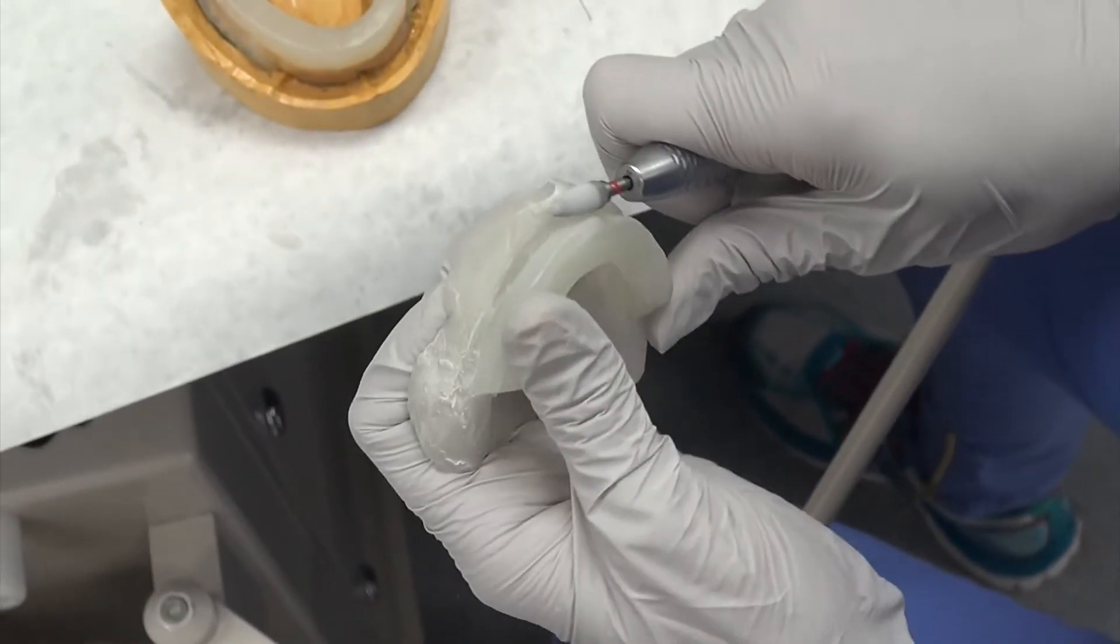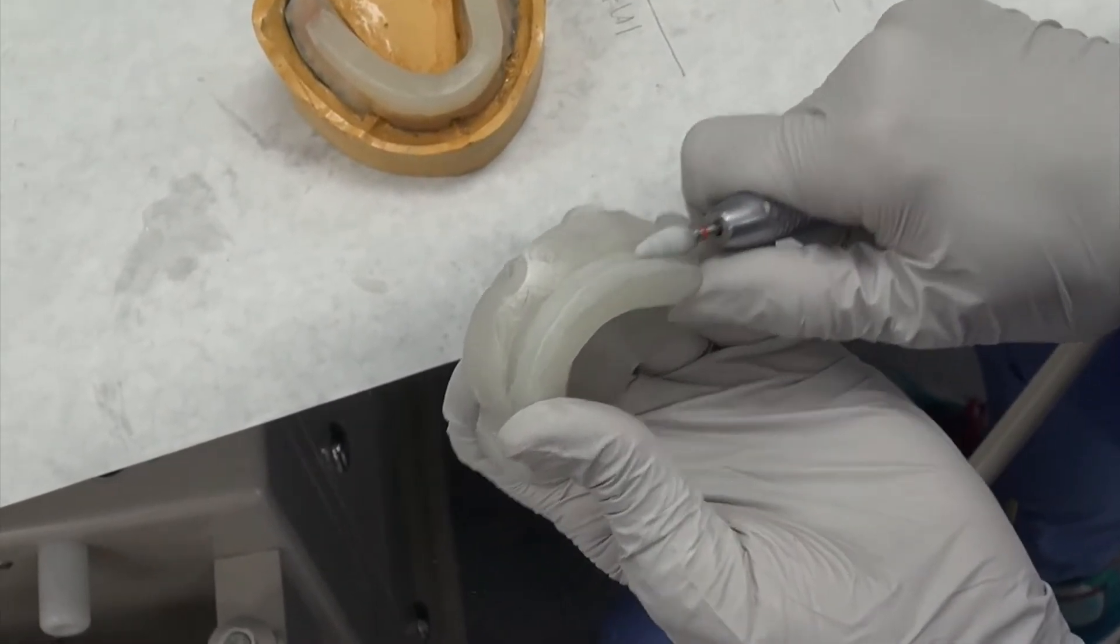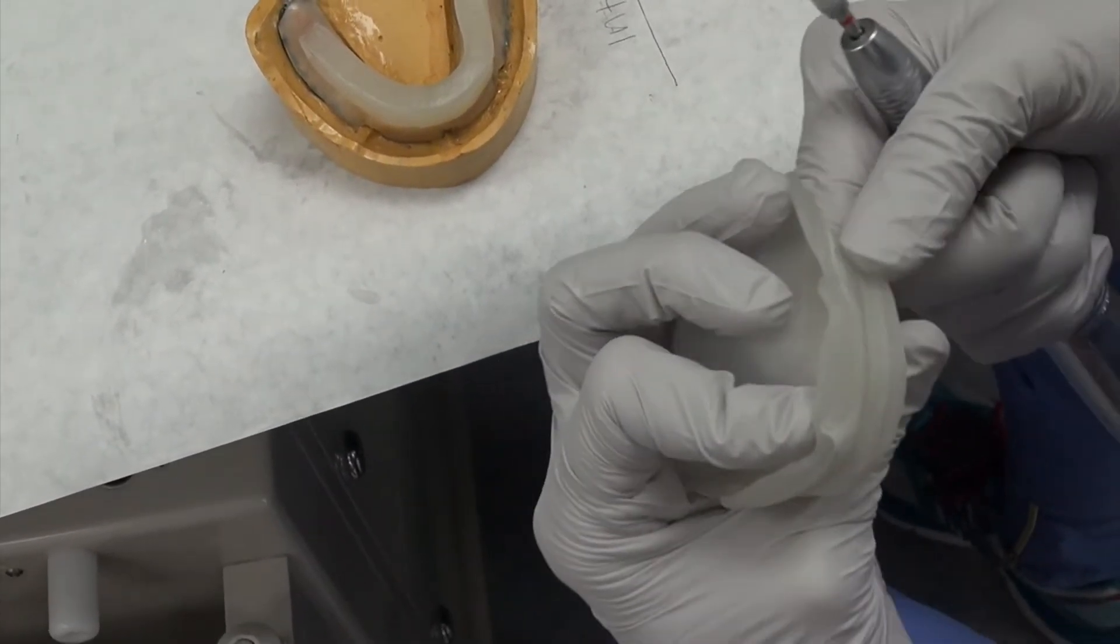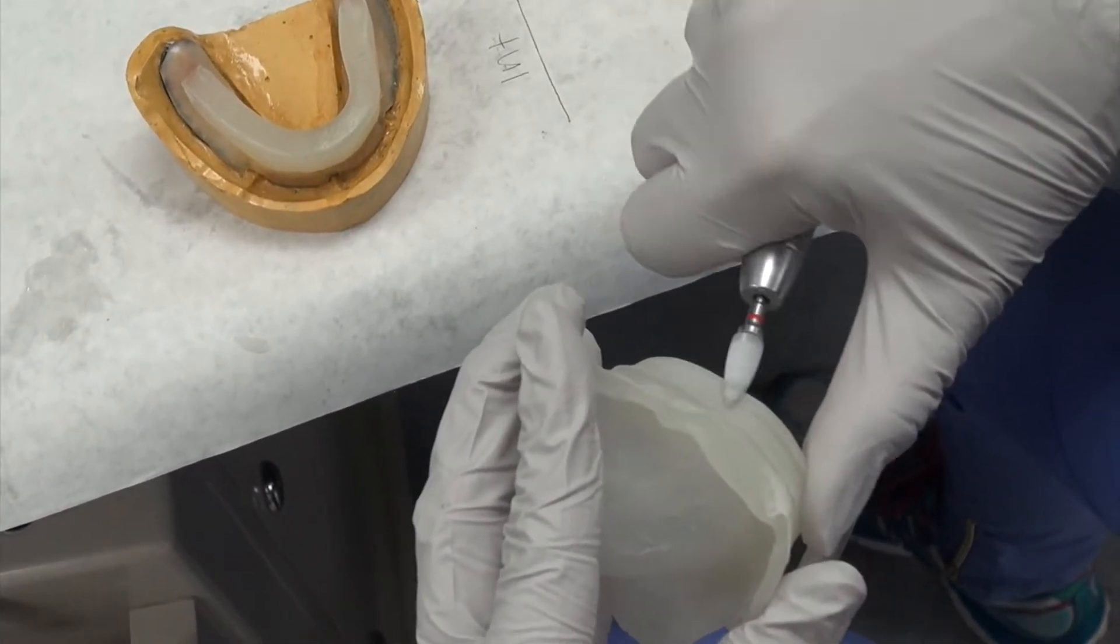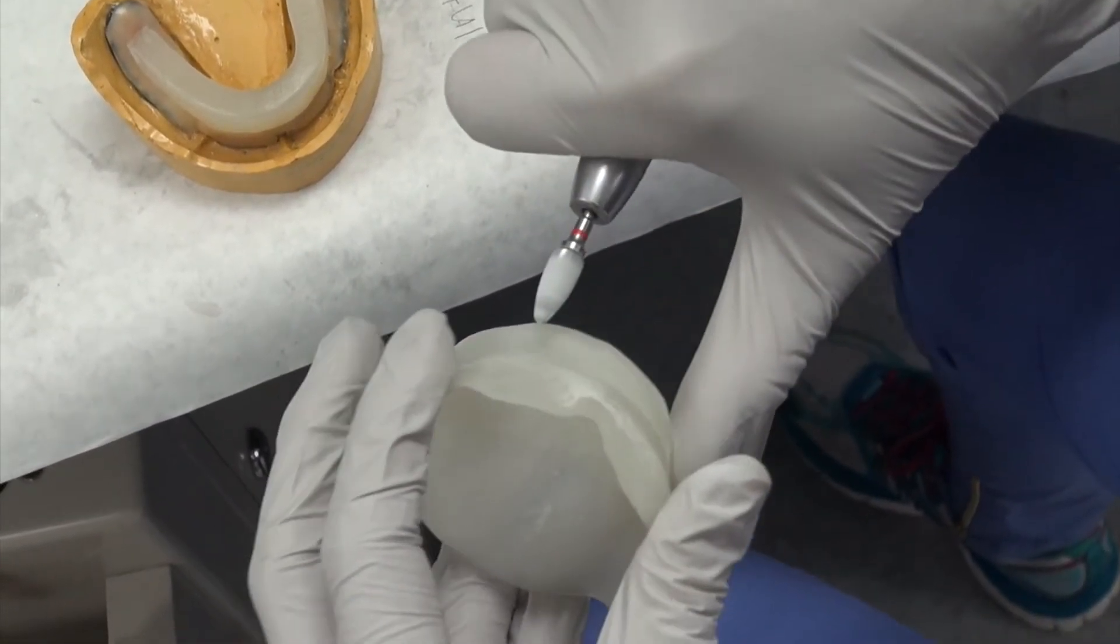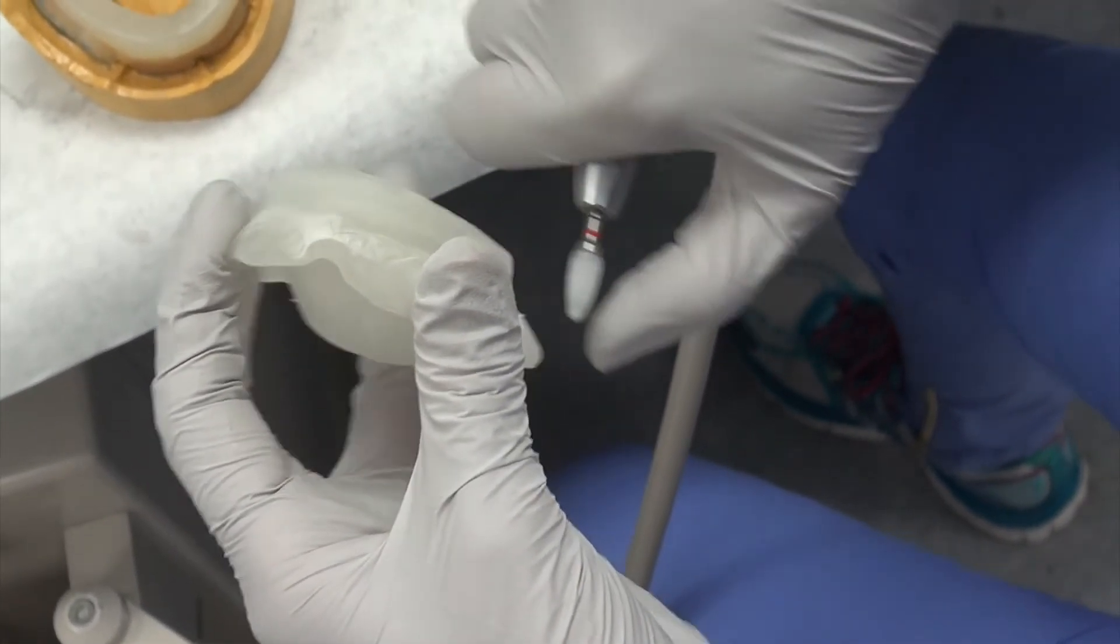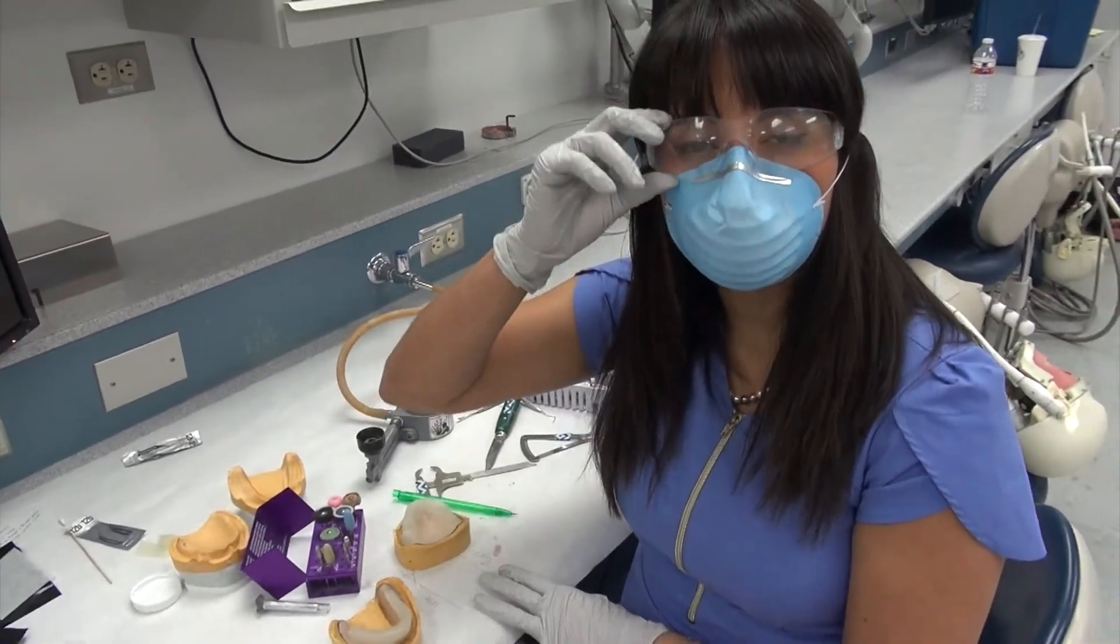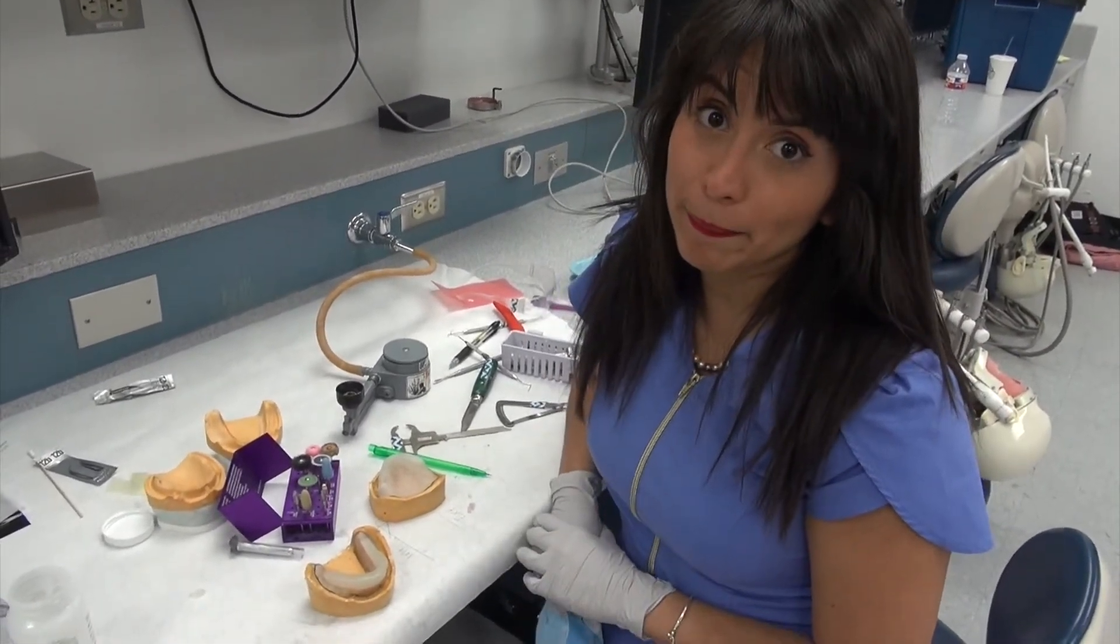So some people, as I said, prefer to incorporate the major anatomical features afterwards. So that's how you would incorporate that concavity after the fact. And then if you wanted to, you could even smooth up that little edge. So you're going very, very fast. And just repeat on the internal surface, the external surface, and then on the mandibular.